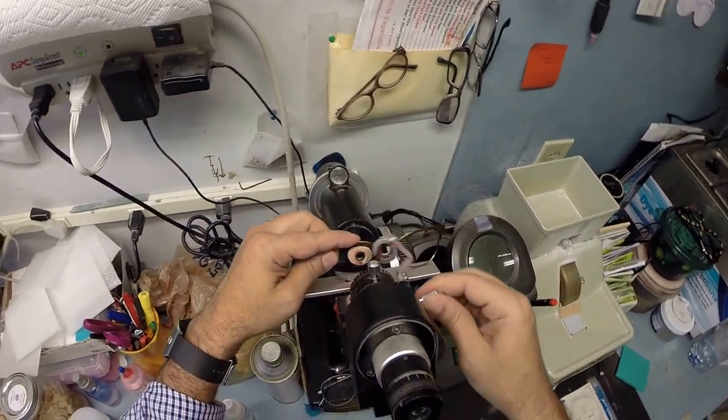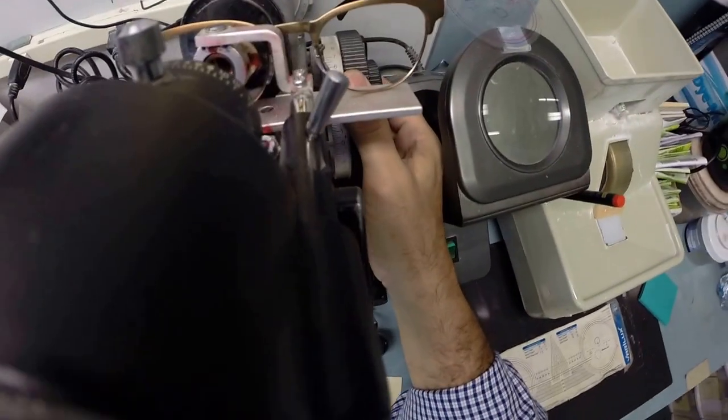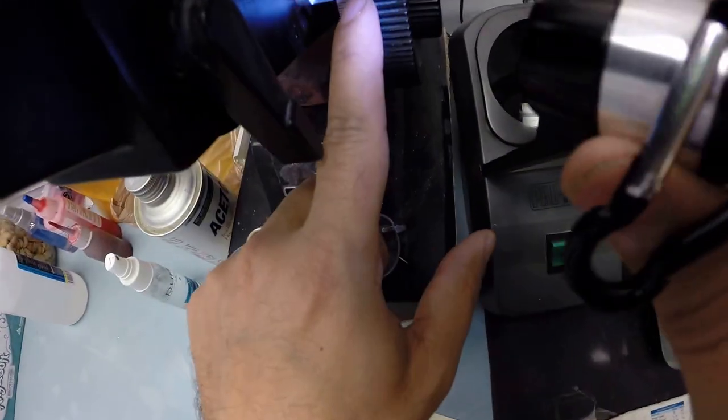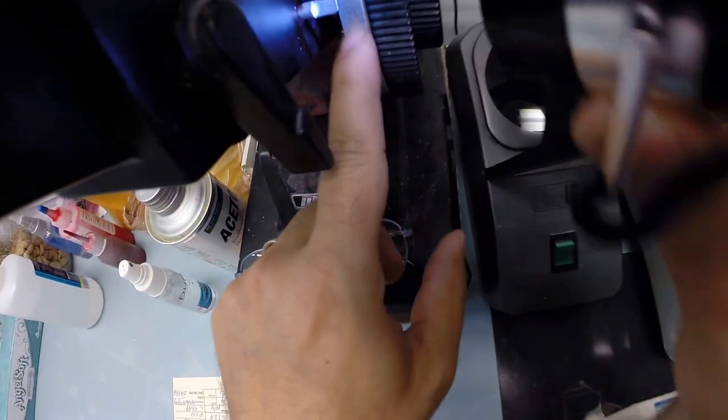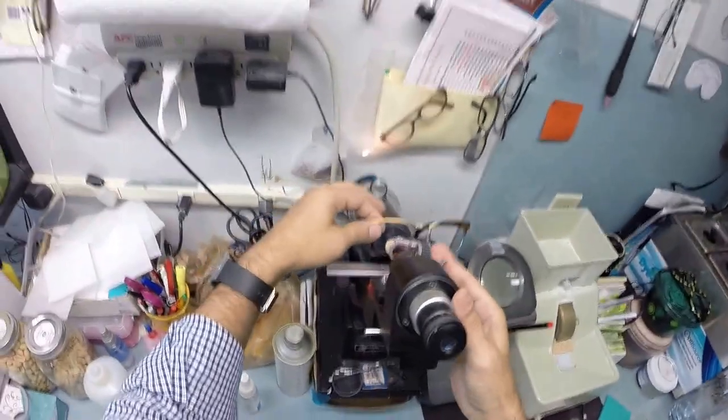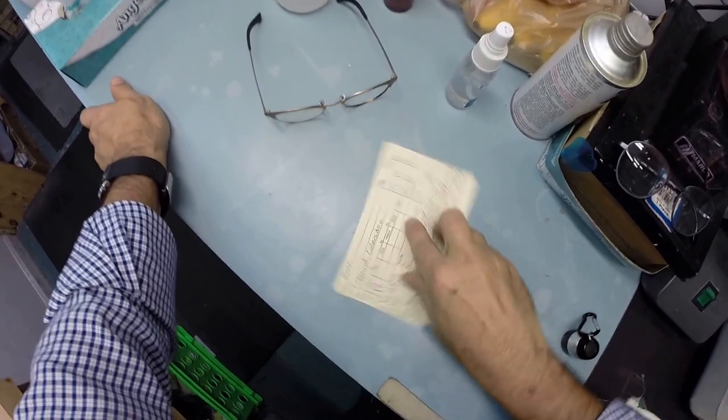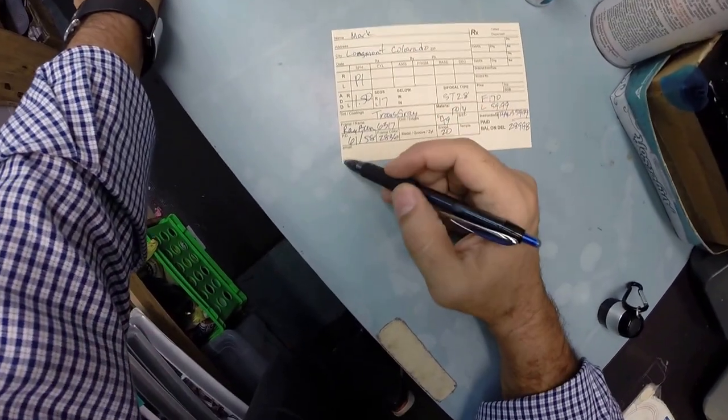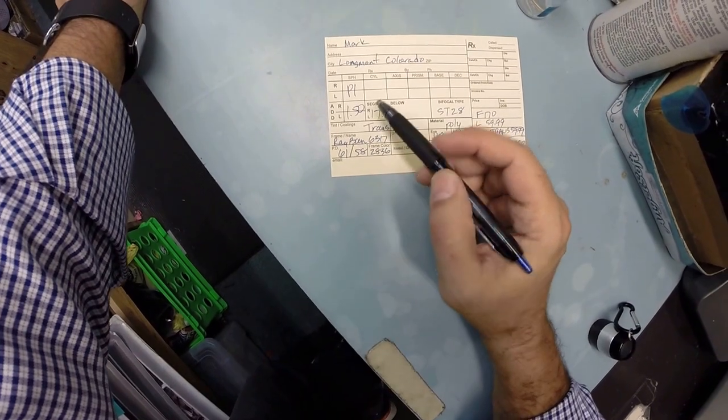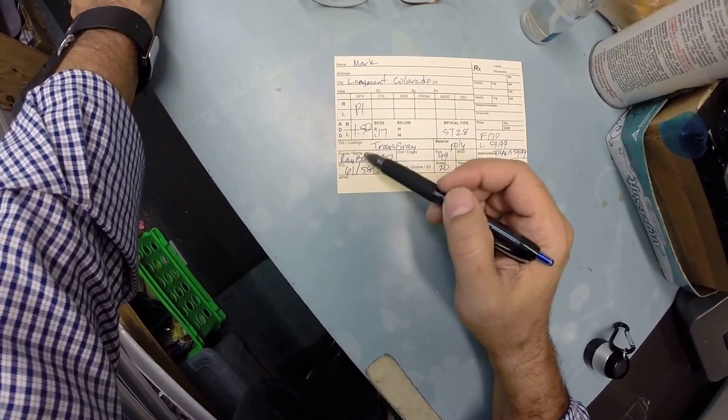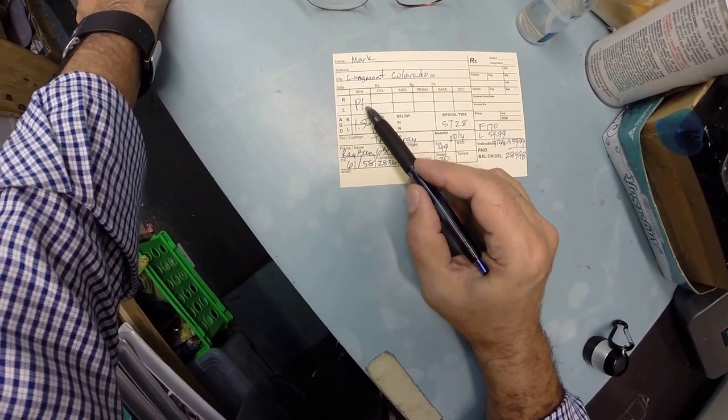Go ahead and take that off now. The sticker is no longer needed as well. Dry everything off. So we're going to come back down to here and inspect the lens in my dusty Marco 101 lensometer. I'm going to put it in and read the prescription off the top. And I'm getting zero. So there is no prescription in the top of the lens. We are going to read the bifocal strength and I'm going to read plus 150 which is exactly halfway between one and two. Now the unit of measurement we use in the optical world is called a diopter, spelled D-I-O-P-T-E-R. It starts at zero which we in the business call Plano, that's the abbreviation for Plano P-L. Other people call that a city in Texas. But it goes up in quarter increments .25, .50, .75.